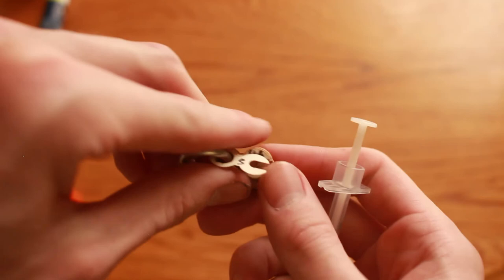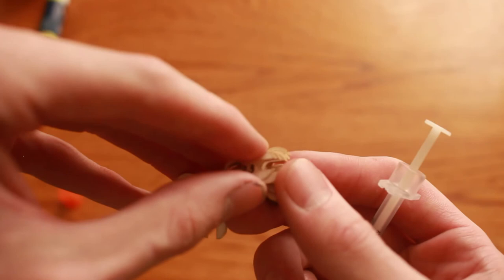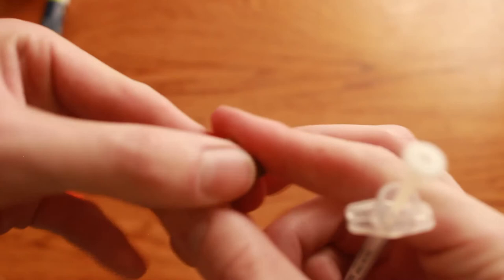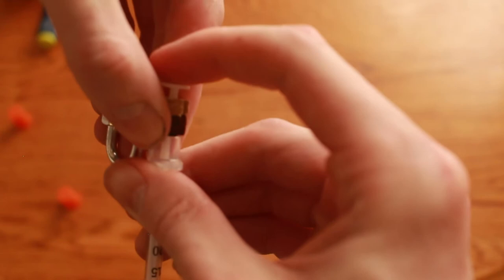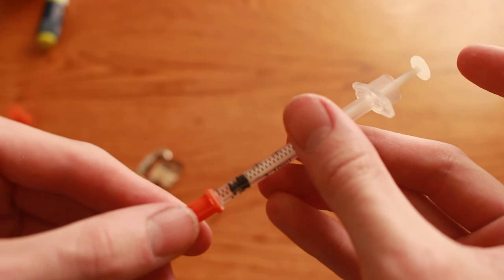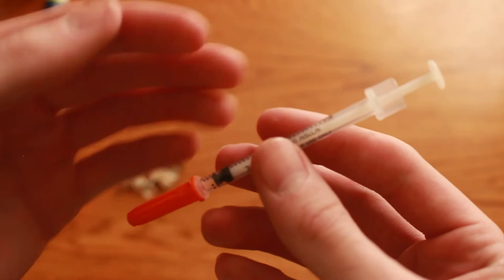Let me give you another example. Let's say you're at five units right now and you want two and a half units. So what you do is you take it down to two and a half units marked like that. You'd line these up, put your plunger in like so, you press down in your belly or wherever you shoot and bada bing bada boom two and a half units is left meaning you took exactly two and a half units.